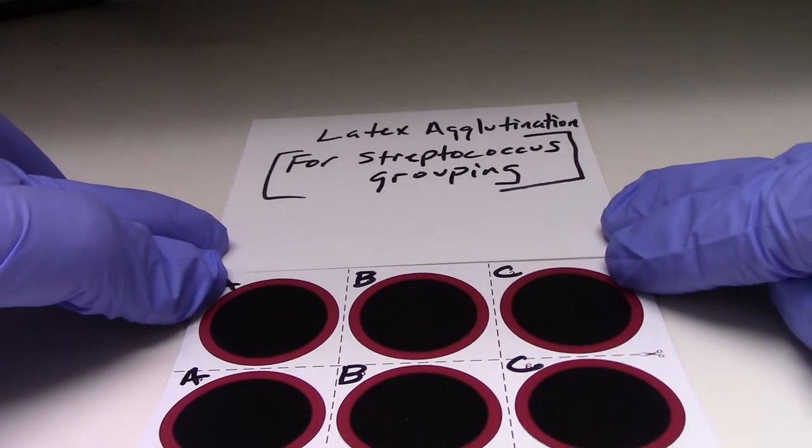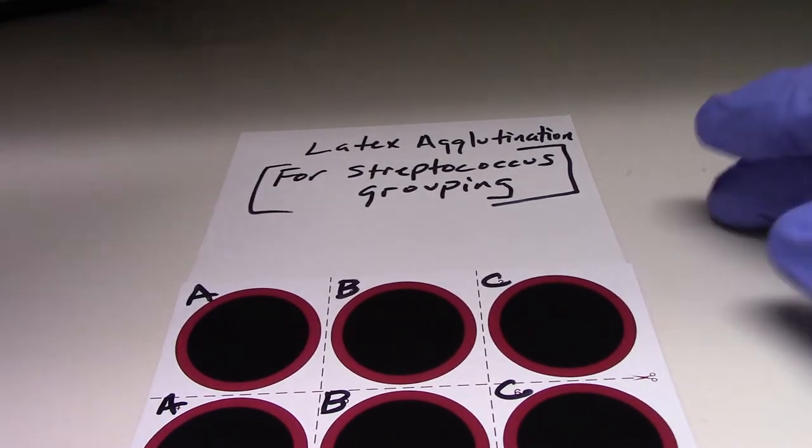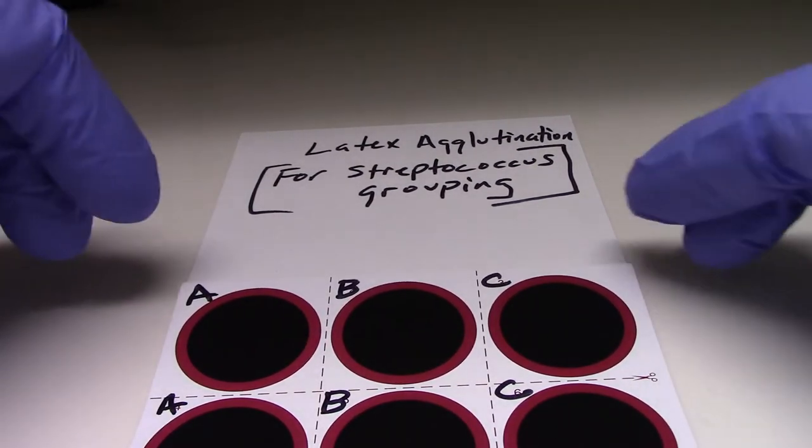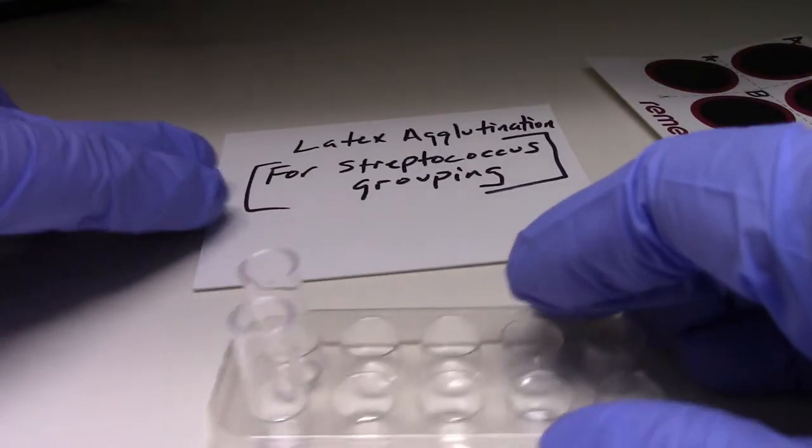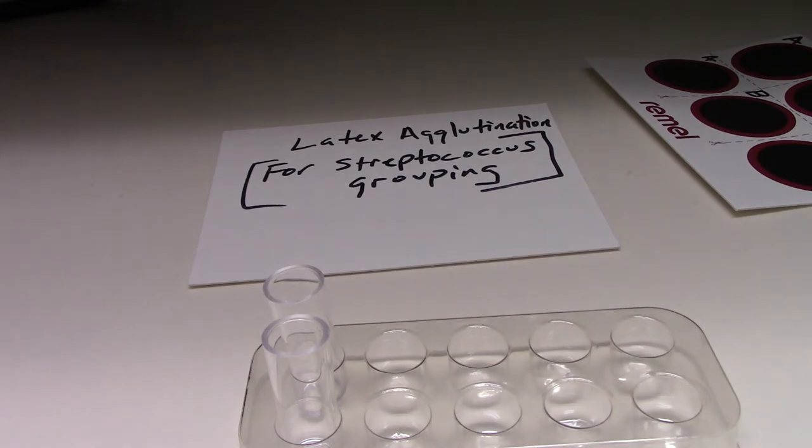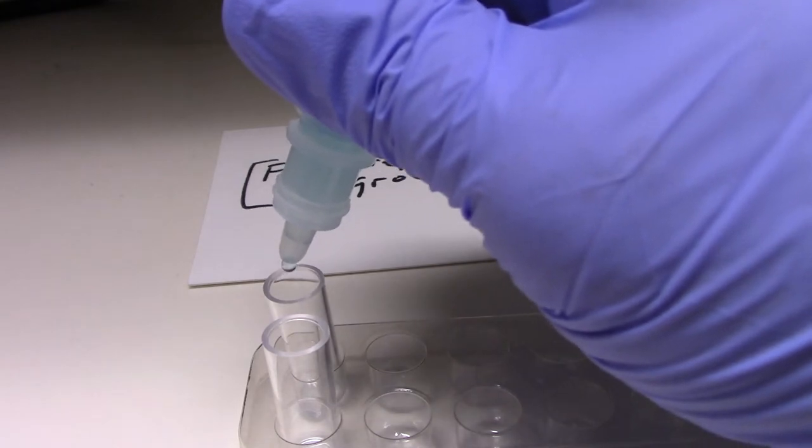And the testing will be performed on these wells. But first, there has to be an extraction step. The extraction step is as follows. We have two different specimens I'm going to be testing. First, there'll be an extraction step that utilizes acid.